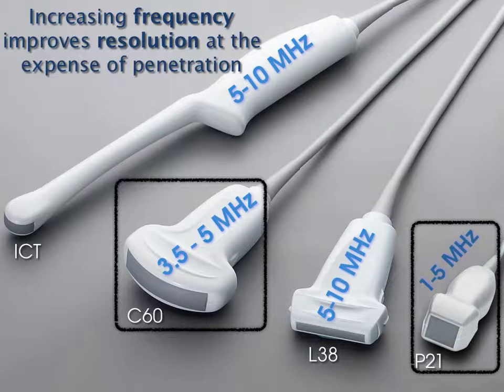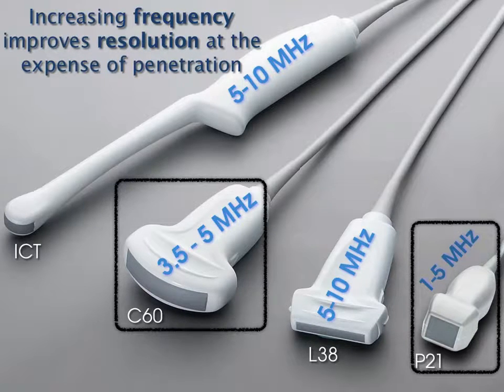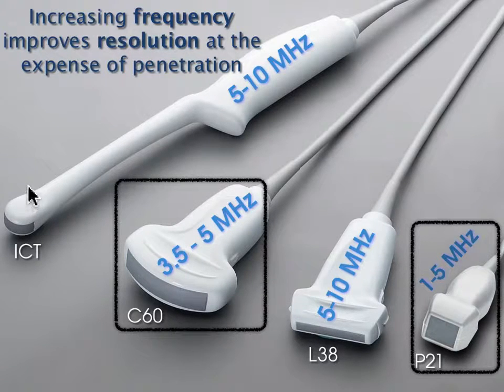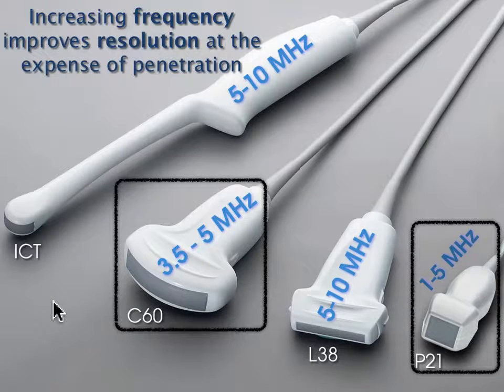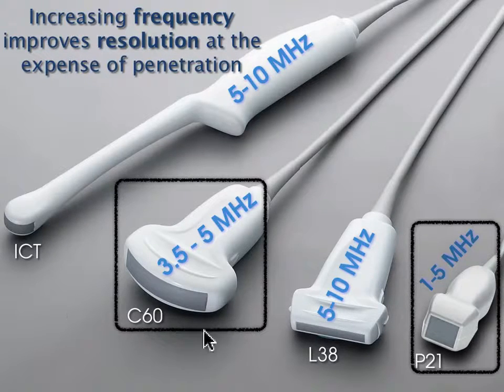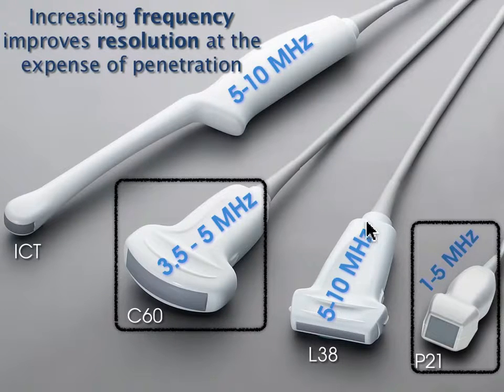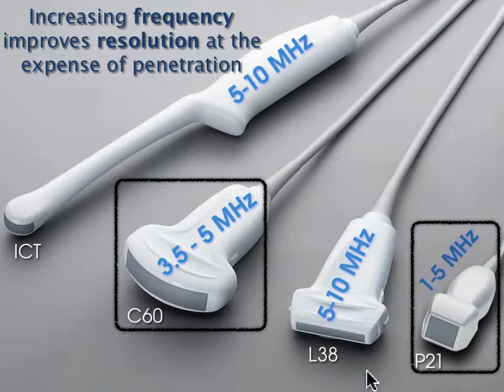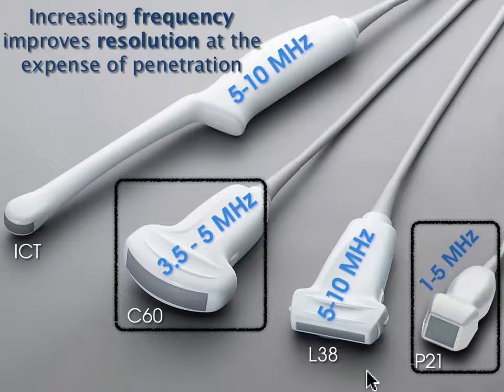An intracavitary transducer can see the bladder from within the vaginal vault, but the tight curvature causes a lot of artifacts. We always recommend women have a completely empty bladder for endovaginal ultrasound. Unless someone's really thin or has a very full bladder, it would be hard to see the bladder with the L38, especially in an average-size or larger patient.